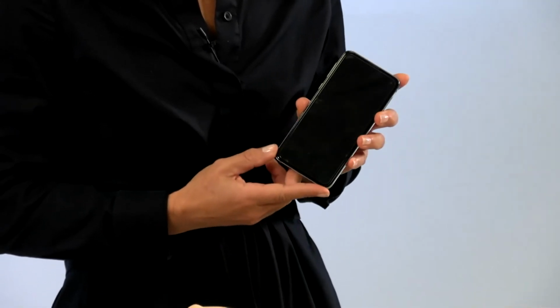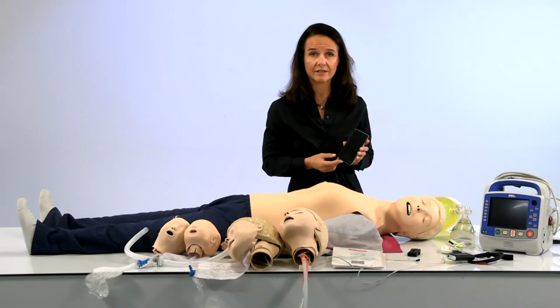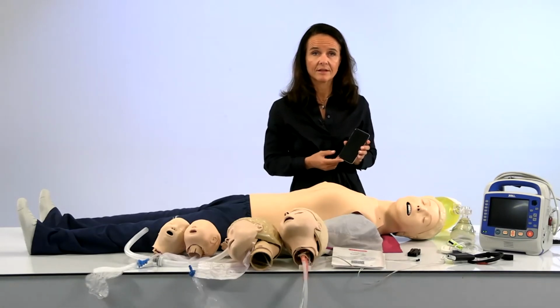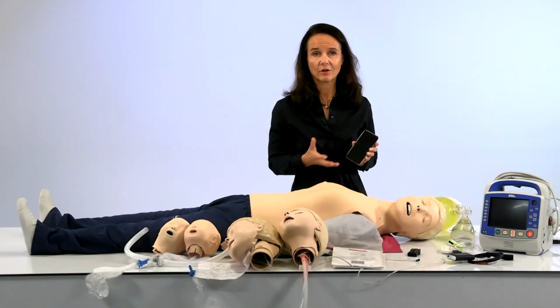However, the first time you download this application, it will prompt you to update your ShockLink device to include the new rhythms. So just put some extra minutes aside the first time you use it, so that you know that you have an updated device before you start the training.